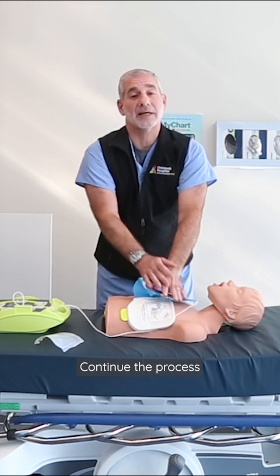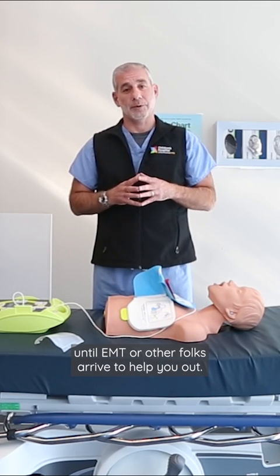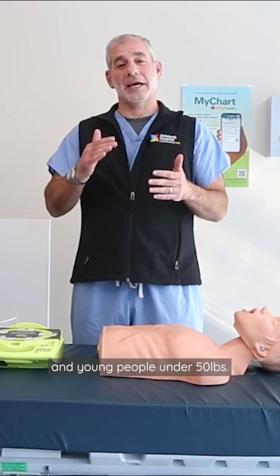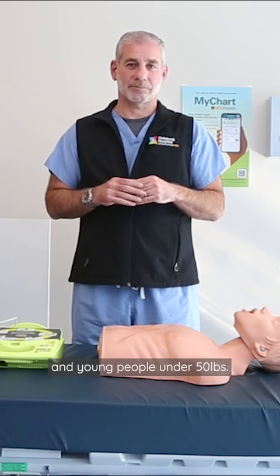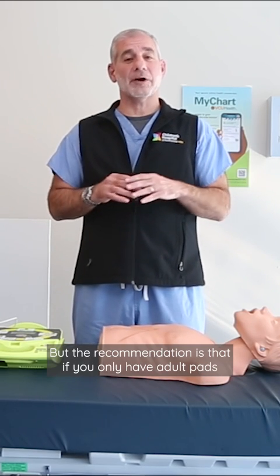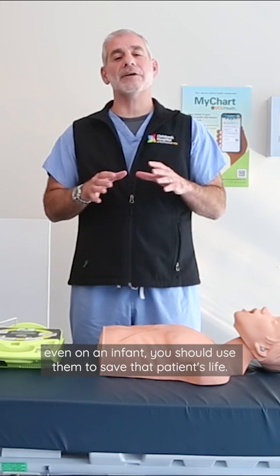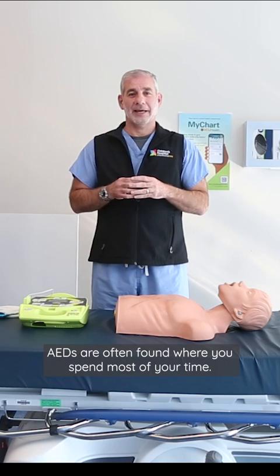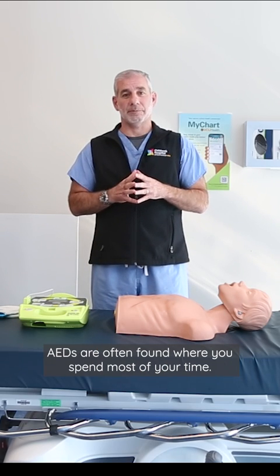Continue the process until EMTs or other folks arrive to help you out. There are attenuated pads for infants and young people under 50 pounds. They're a bit smaller and give less energy, but the recommendation is that if you only have adult pads, even on an infant, you should use them to save that patient's life.